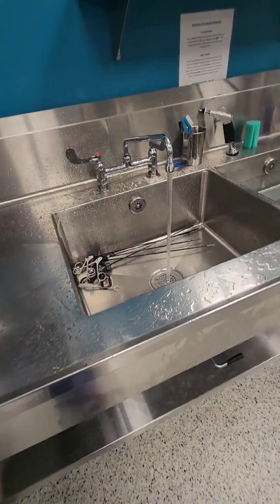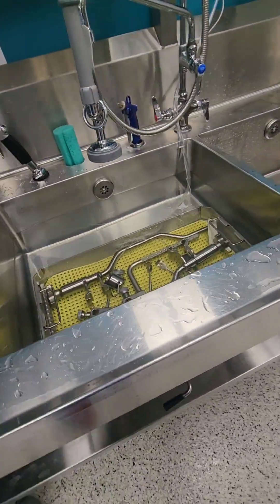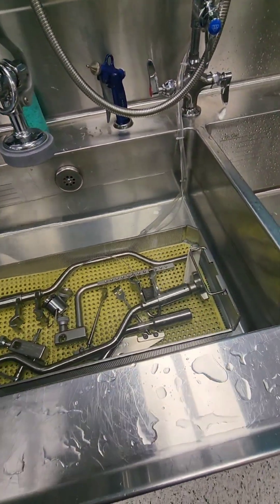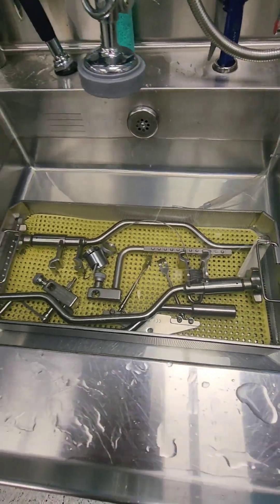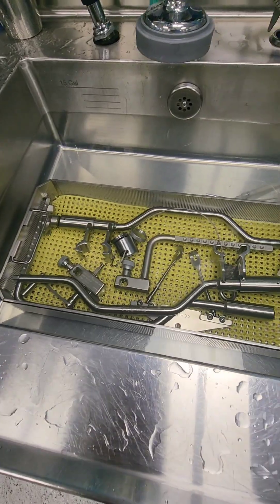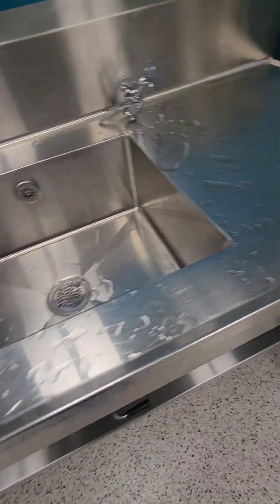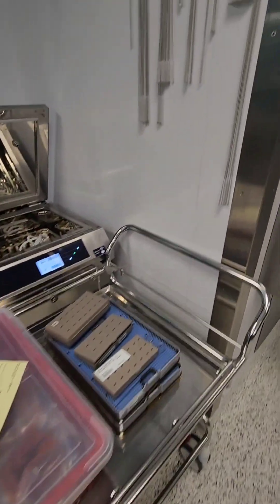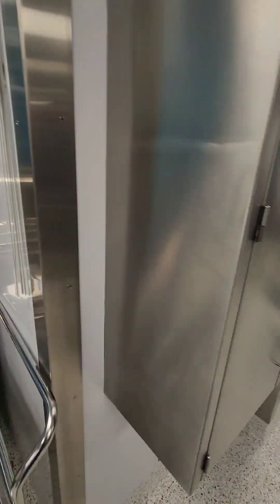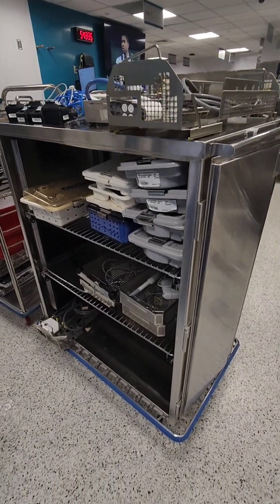Here's one of our sinks with a couple of items in there — you have a tray soaking in detergent. You can put me on blast for that mat being in there — that mat isn't supposed to be in that tray, it's supposed to be separated. We'll talk about that some other time. Over here we have one of our Da Vinci ultrasonics with irrigating sonics.